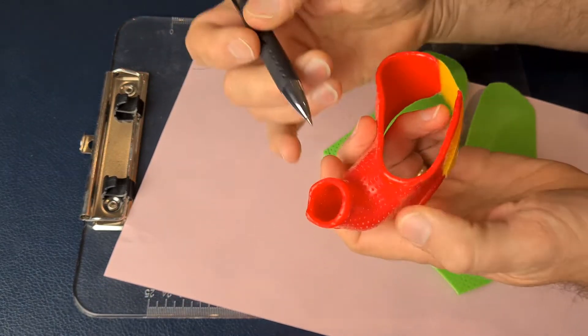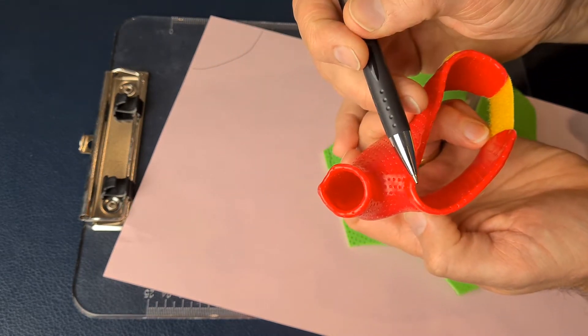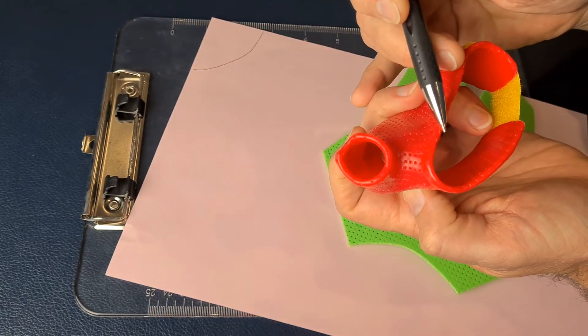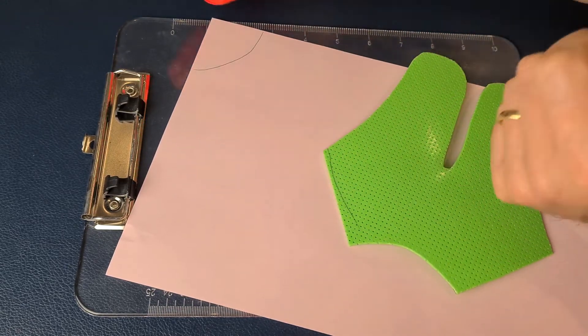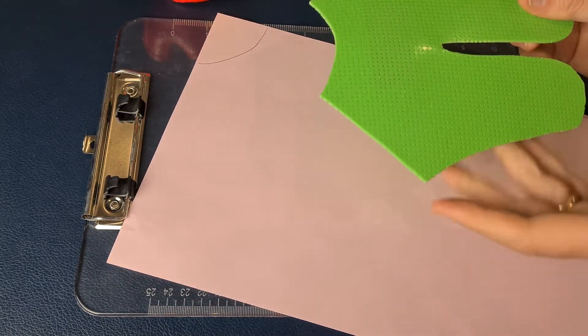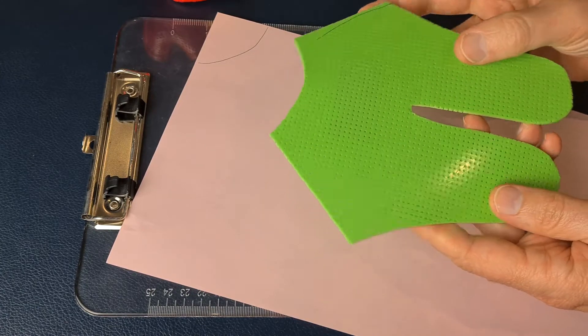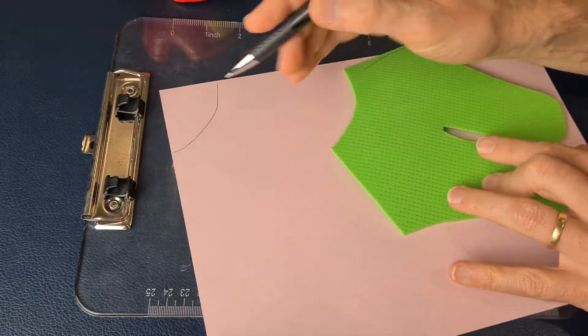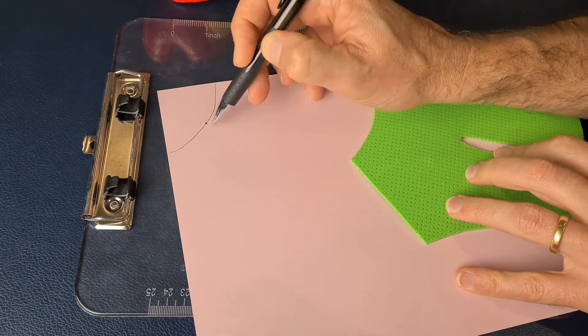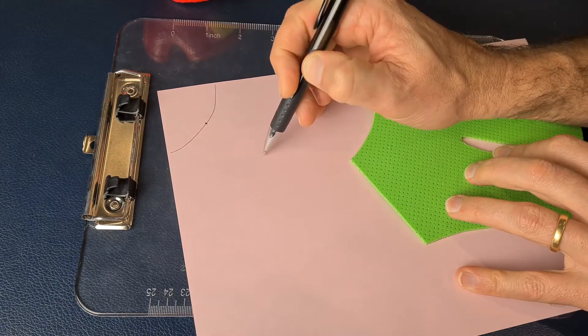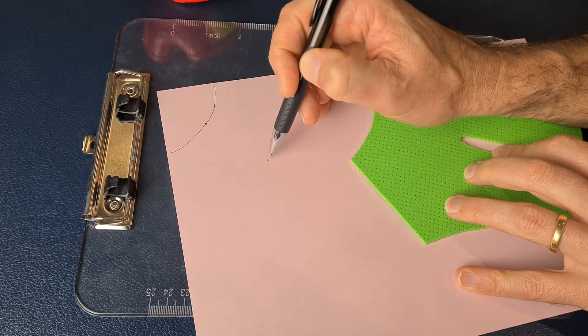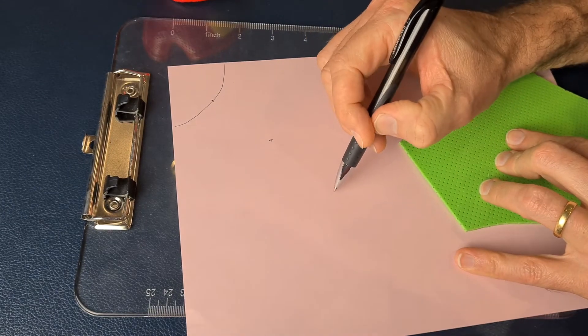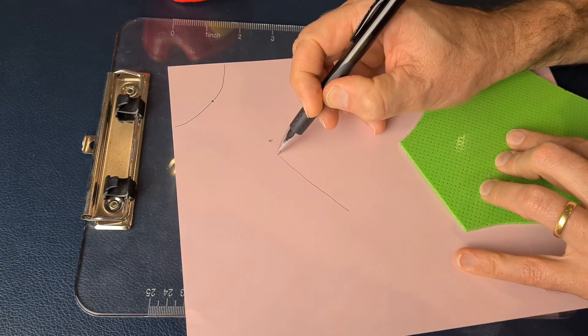If we look at that on the splint, it's this part through here from the IP joint to the MCP joint, distal palmar crease at the index finger. So if we measure that in centimeters, you can just go from midline here and diagonally across the page the same number of centimeters, and then I would just draw a couple of straight lines almost parallel heading up towards that midline.